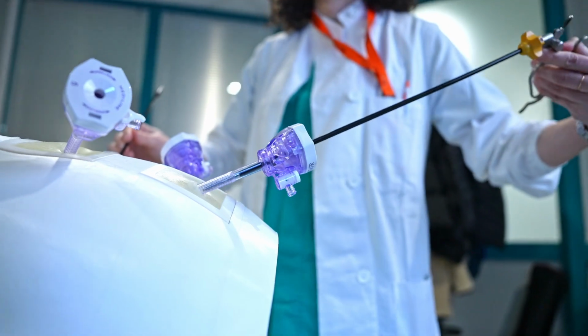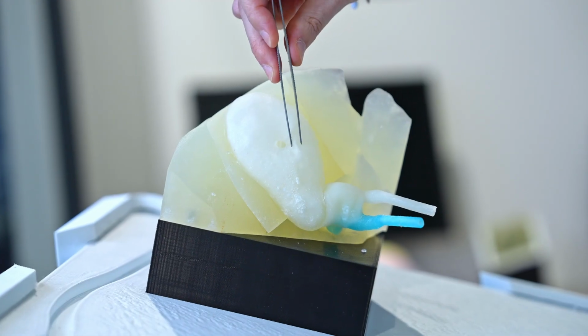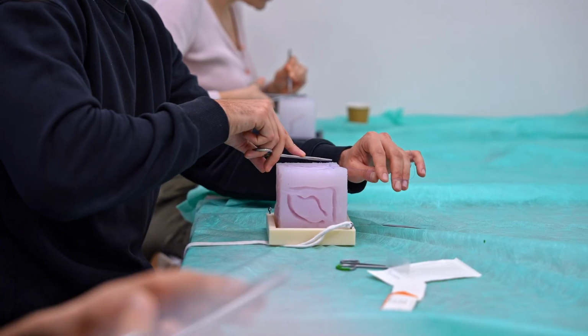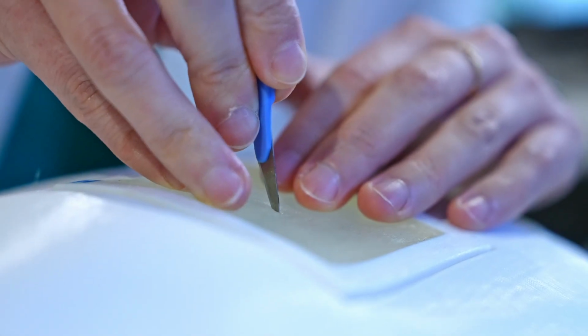Here at the University of Pavia we have chosen to simulate materials, and we are currently 3D printing something which is very similar to human skin to train our students. I think there's no way that a modern faculty of medicine can teach its own students without having to engage in medical simulation.